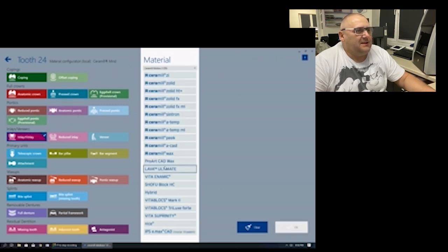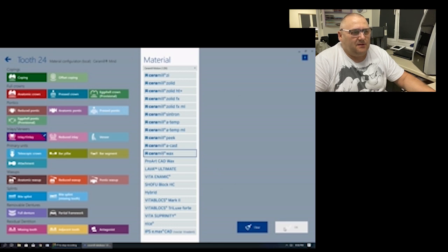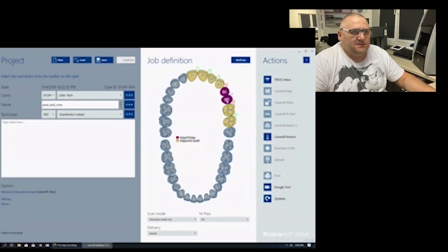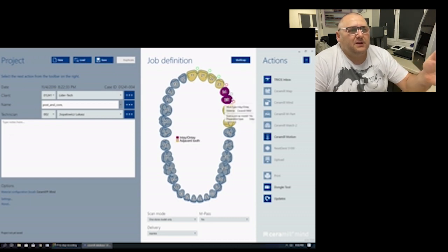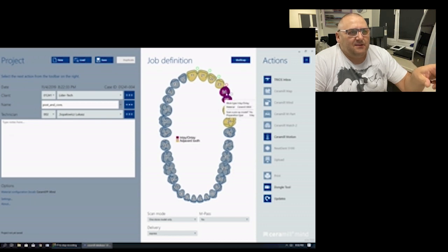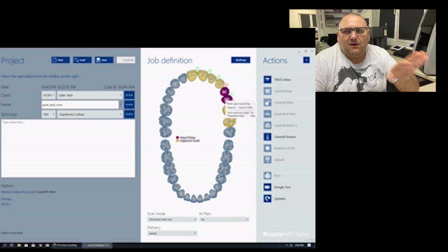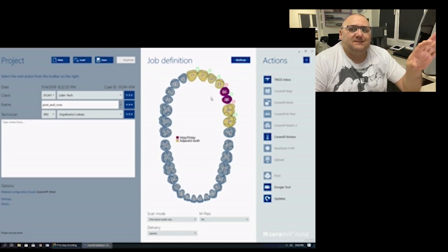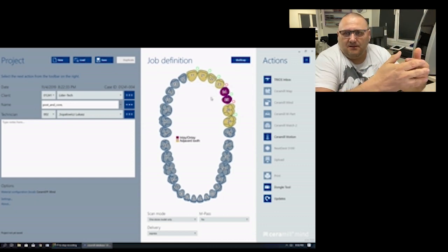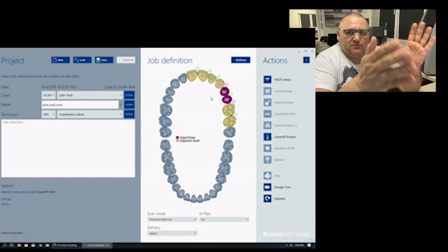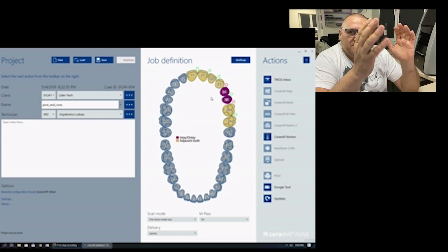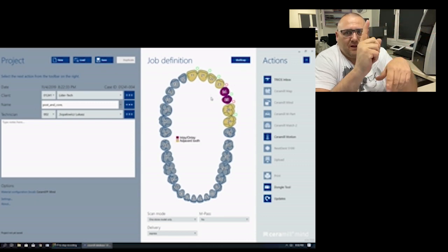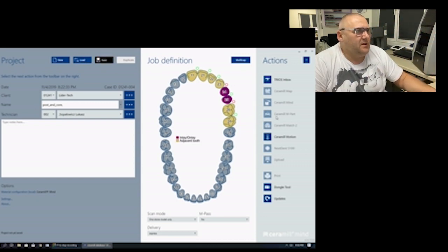Don't save. Then we should tell our system that it will be a bridge. So for the neighbor tooth we set it as an inlay only. Now we want to make a post and core for tooth 25, but we set tooth 24 as the same reconstruction type and connect them — and now we have a bridge. We are not in the situation of designing from scratch; we just need to set two points. We need only one point but we set two points. Save.